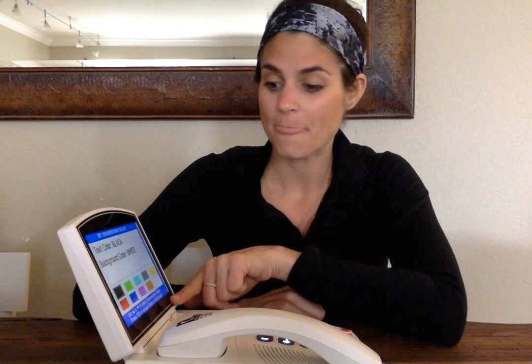Here you can change your text color by hitting yes, and all the color choices will come up. Remember to use this blue line. It's very helpful. It tells you what these buttons up here are doing on this screen. So I'm going to exit out of this part. I'm going to hit no to go back to this previous screen.